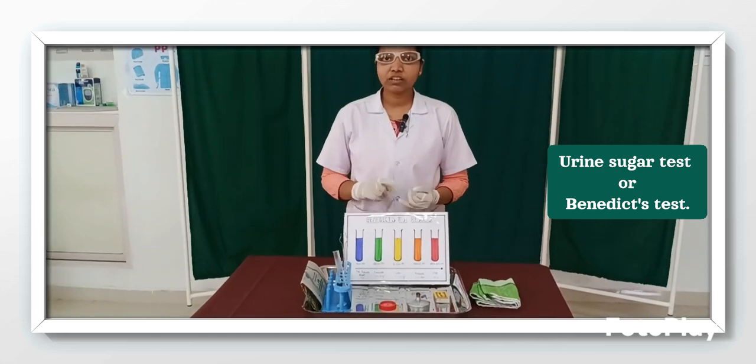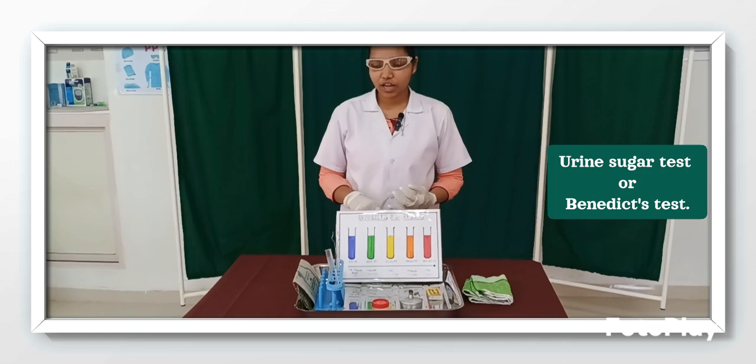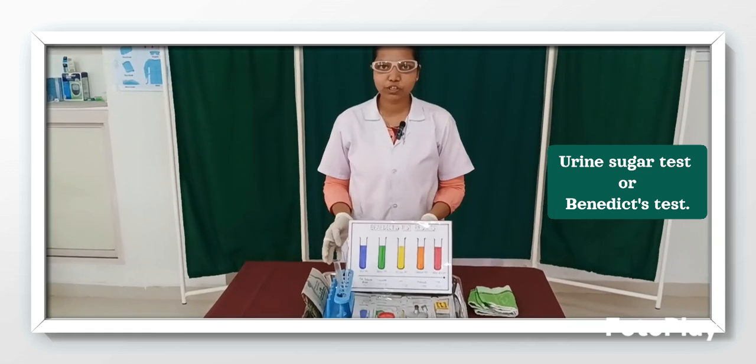Have to record what procedure we did and which type of solution we used, and we have to record if any color change is there. So this is all about the urine sugar test.